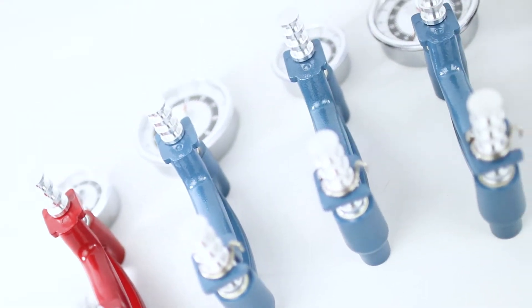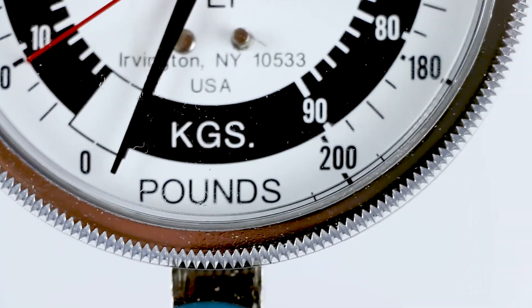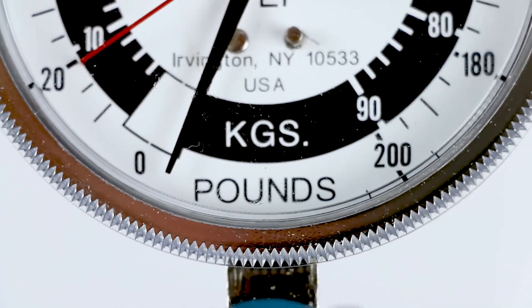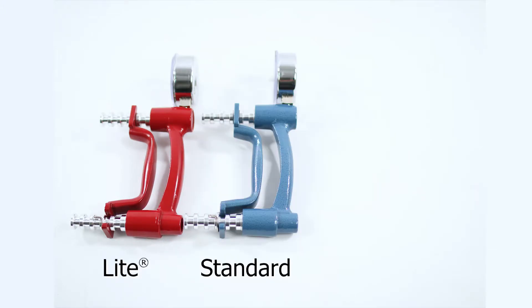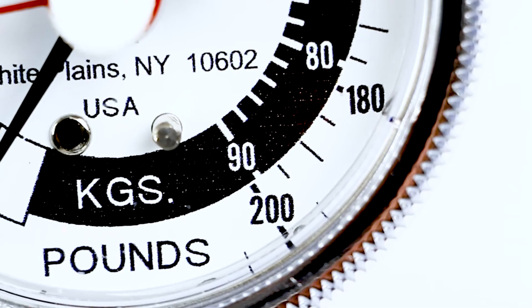There are six different types of baseline hand dynamometers. Each model displays grip strength in both pounds and kilograms. The light, standard, and HD are all designed with a 2.5 inch gauge and have a 200 pound weight capacity.